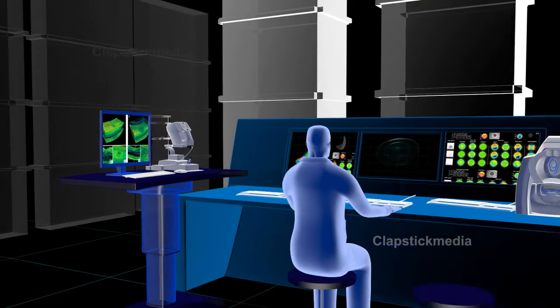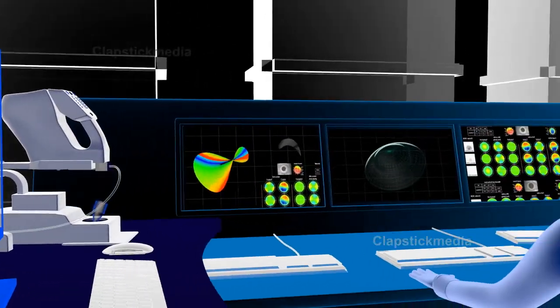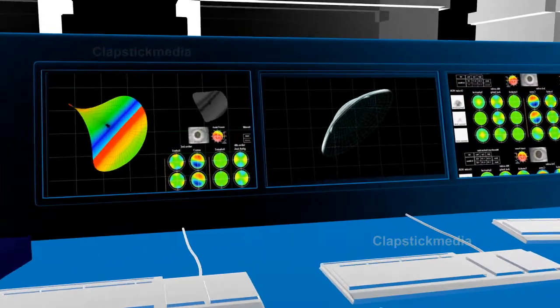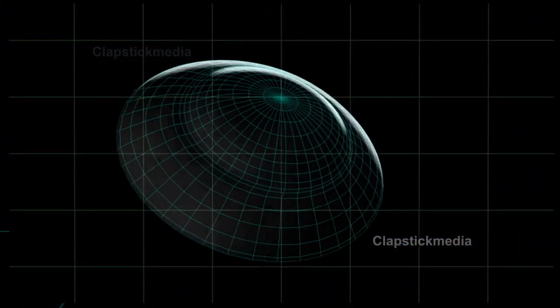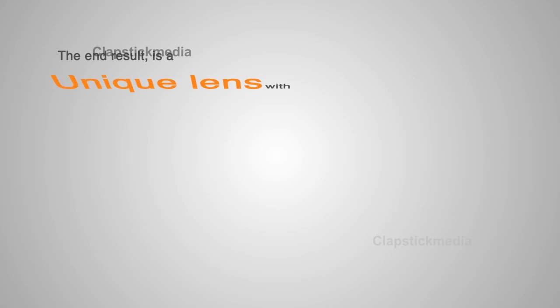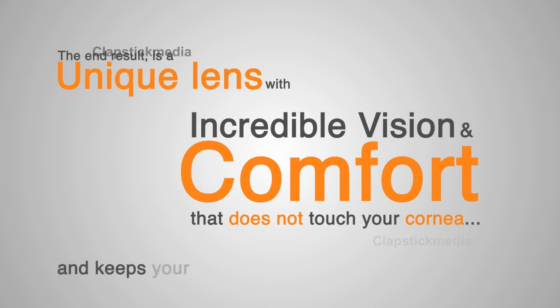Finally, specialized 3D computer modeling software plus our revolutionary wavefront guided processes are used to counter and neutralize deviations within your lens optics. The end result is a unique lens with incredible vision and comfort that does not touch your cornea, filled with a soothing tear-like liquid that keeps your eyes constantly wet.